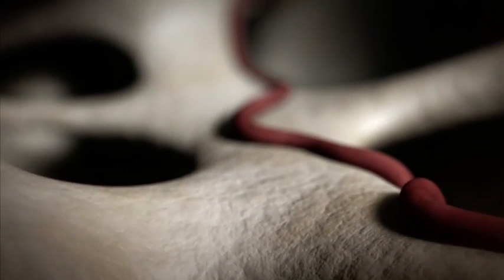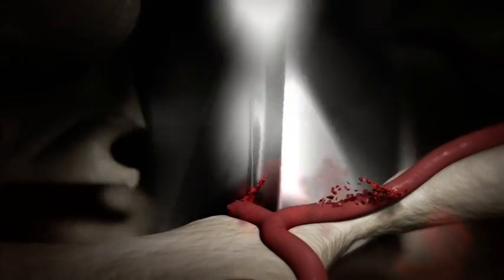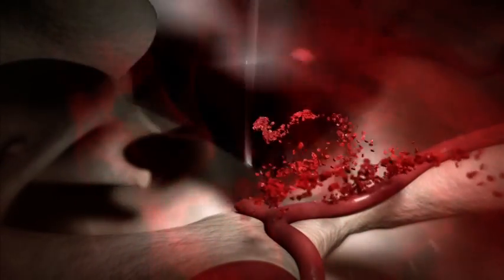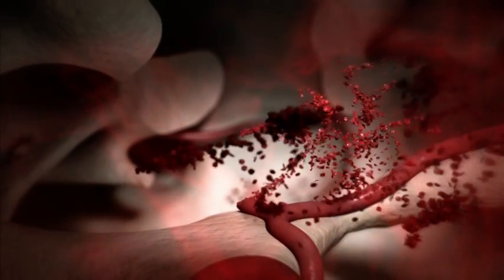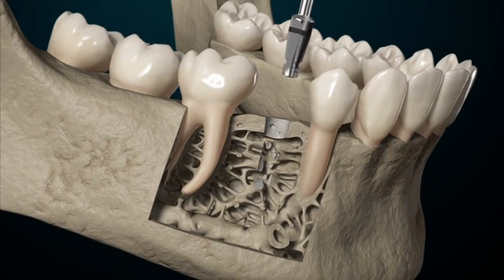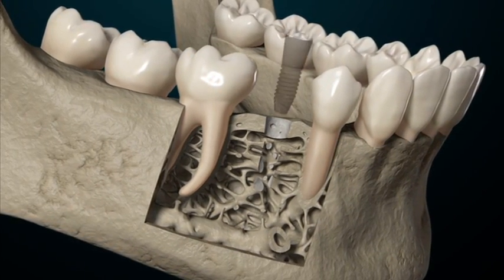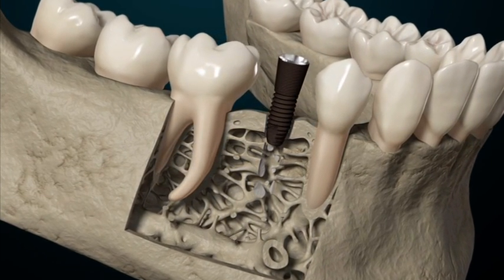Sometimes, however, the unexpected happens. A drill intrudes and destroys the naturally sculpted bone. Blood vessels are torn and a major defect is created, quickly filling with blood. The titanium implant is inserted where the tooth was previously lost. At first, the only force holding the implant in place is mechanical friction. This is called primary implant stability.